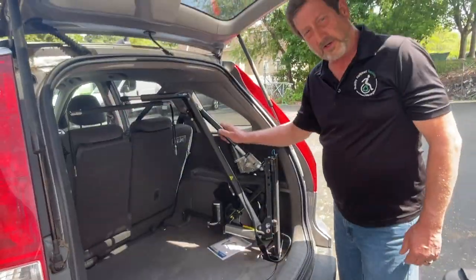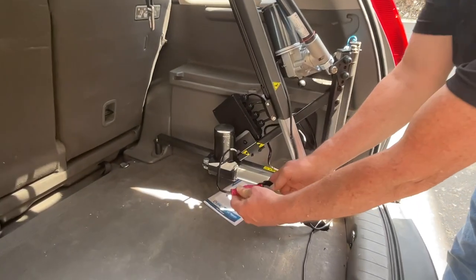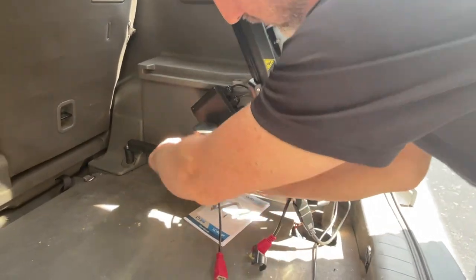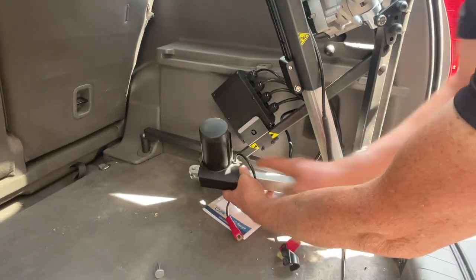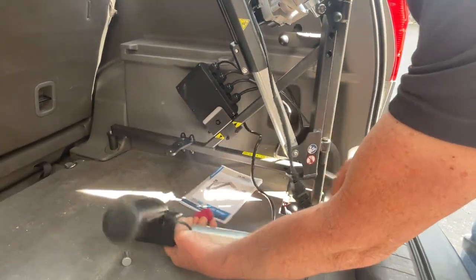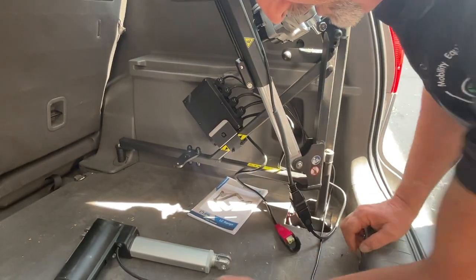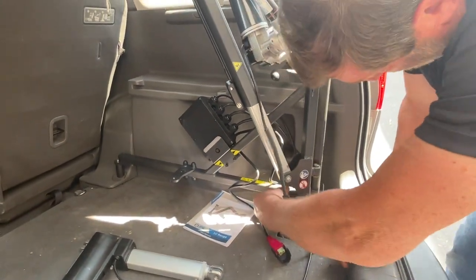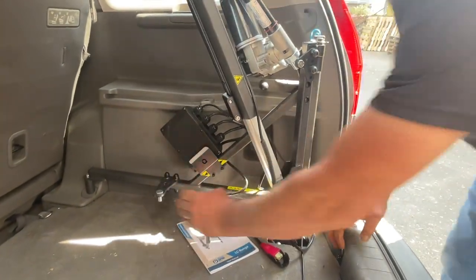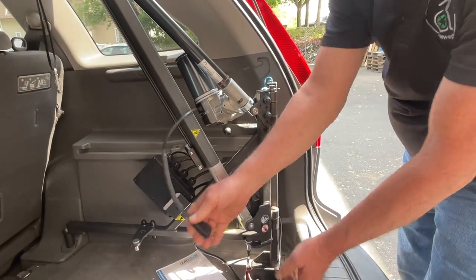Once in the car, this hoist is removable with just a few easy steps. Let's undo the clip connection. Remove the pins from the actuator on both ends and remove the actuator. Put the pins back in for retention. Then, remove this clip for the arm.